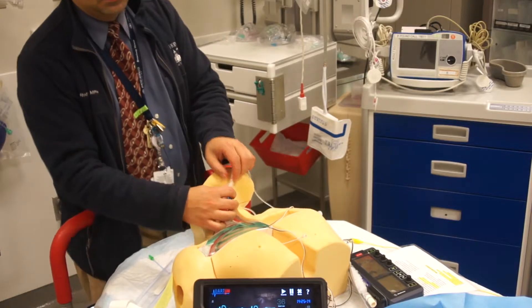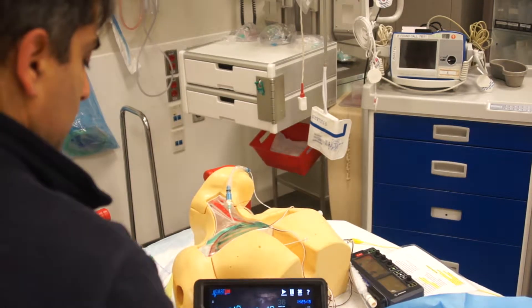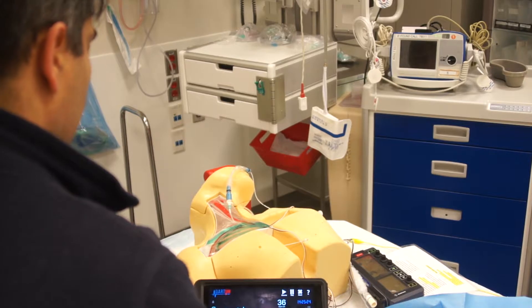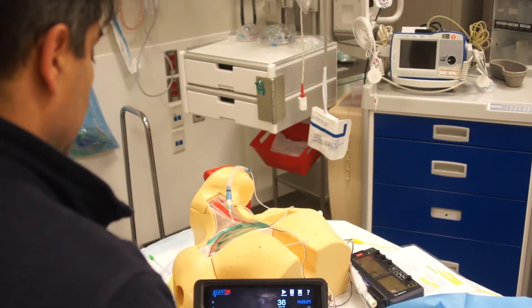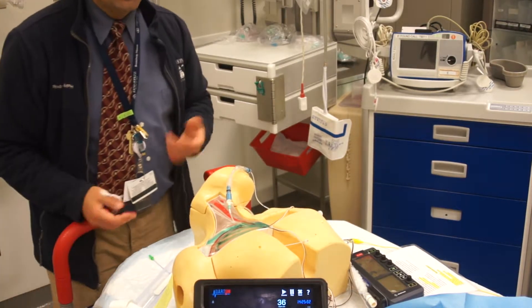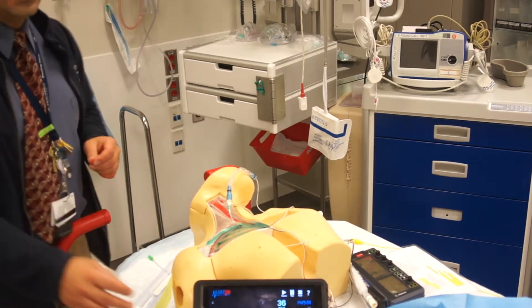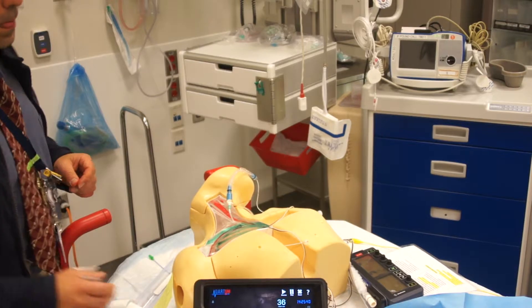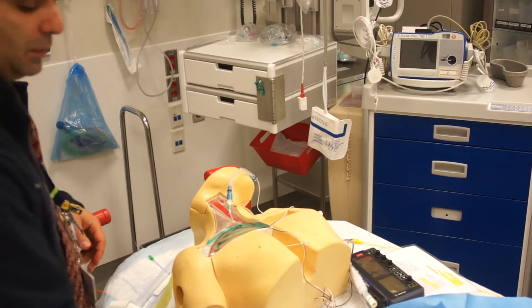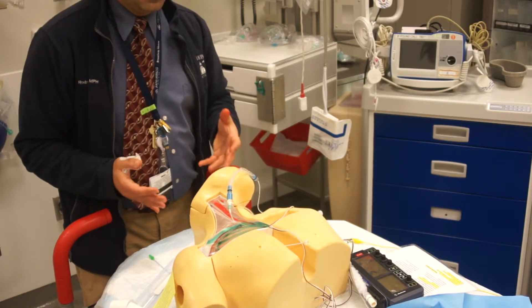As you're inserting this, if you watch it keep going and then suddenly you have asystole and you're starting to do chest compressions, what could have potentially happened is you punctured through the free wall. This is a known complication because you're putting this into patients who potentially have a very weak wall, and you are inflating a balloon and shocking with electricity. If you puncture through the free wall, it's going to be cardiac tamponade.